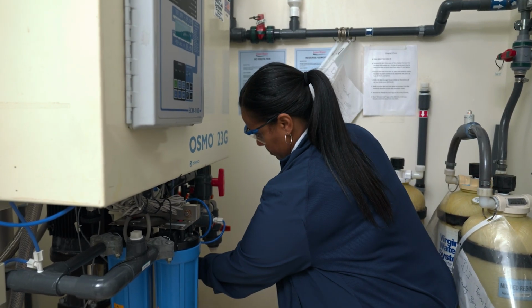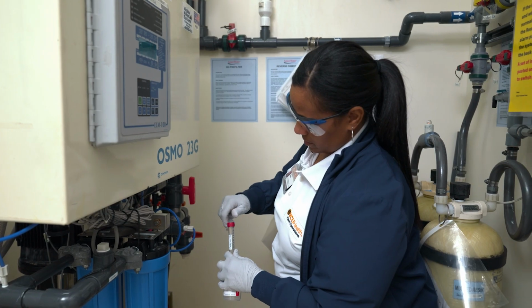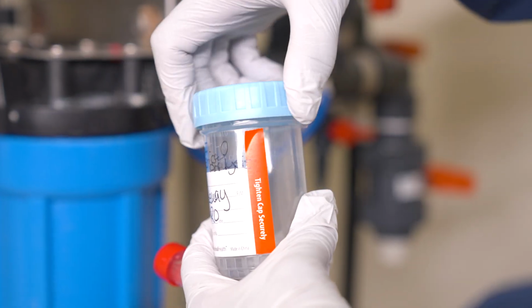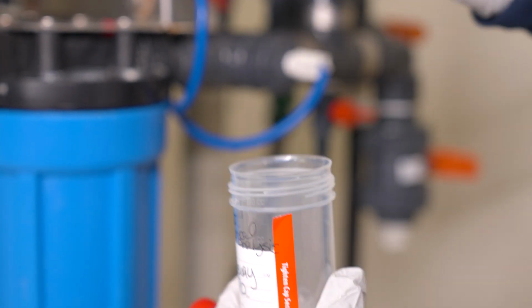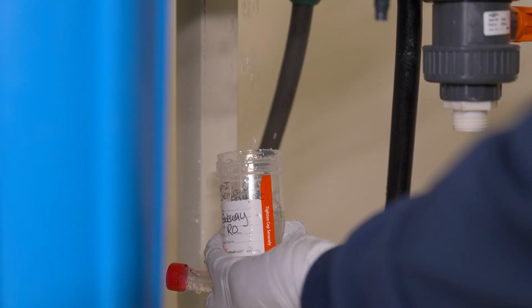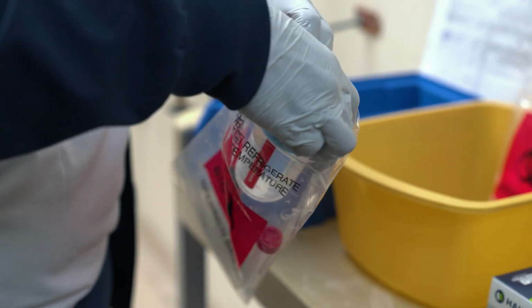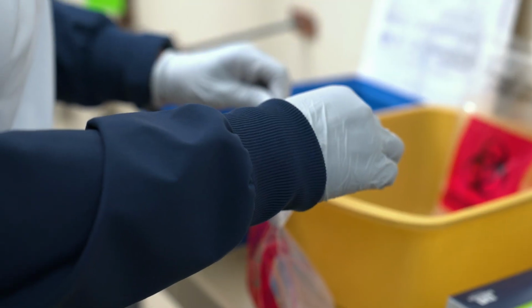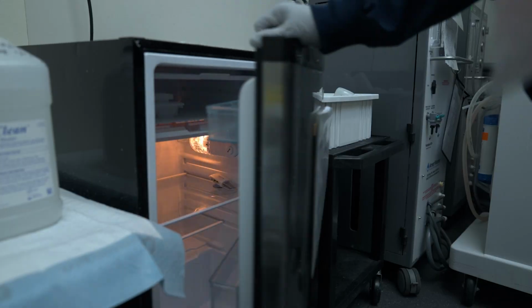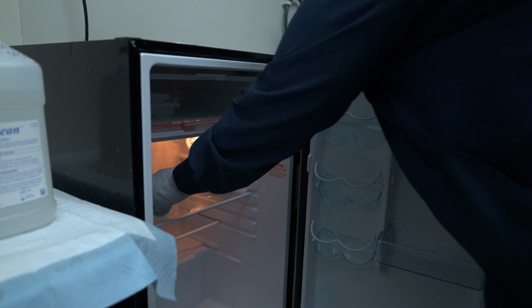First, taking the sterile test tube, use the clean catch method to fill the tube. Once the tube is filled, securely place the lid back on and flip it over once to ensure there is no leaking. Next, remove the cap and using the same clean catch method as before, take the sample. Turn off the water. Place both samples into a biohazard bag, seal it, and place it on a bag of ice. These samples should be assayed within 1 to 2 hours of collection, or refrigerated immediately in a temperature-controlled and monitored refrigerator and assayed within 24 hours.